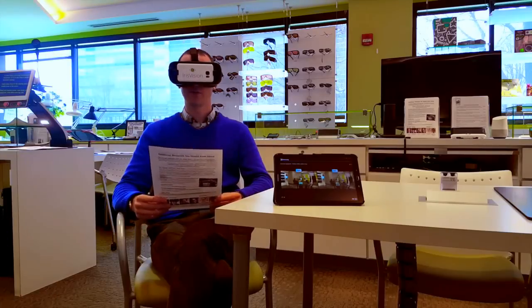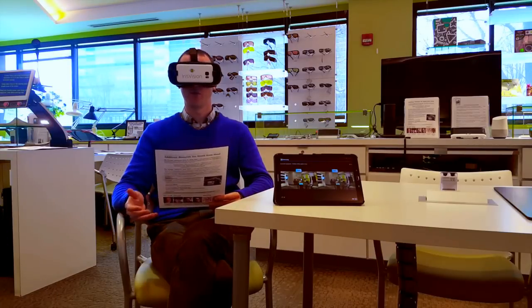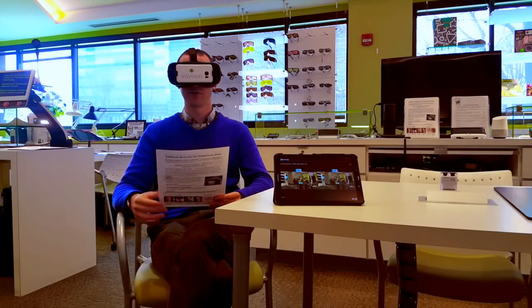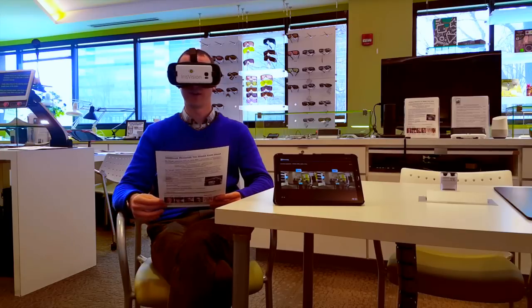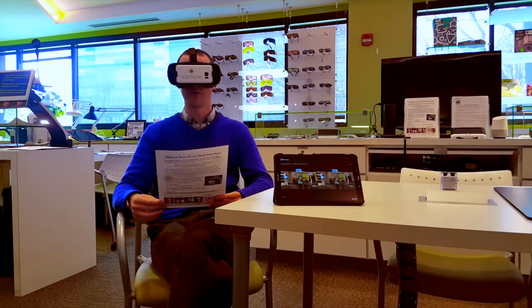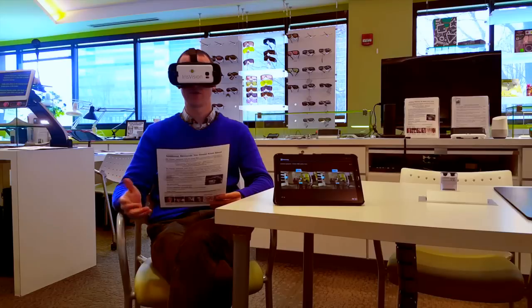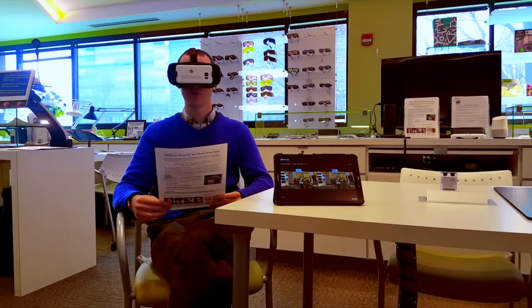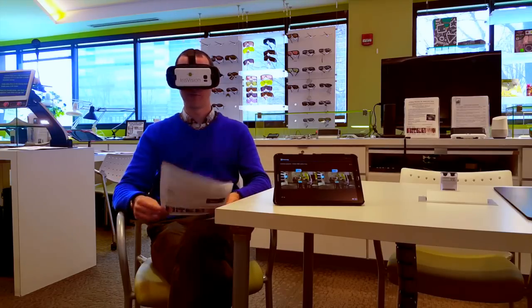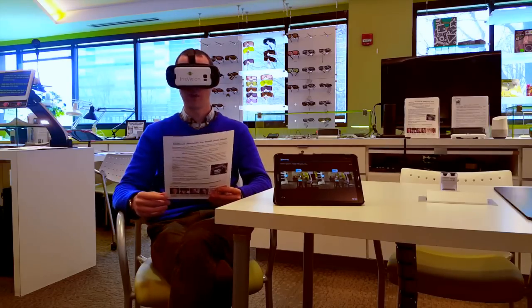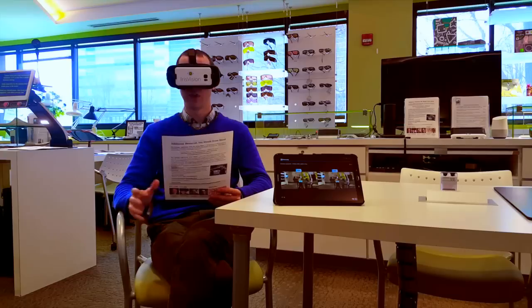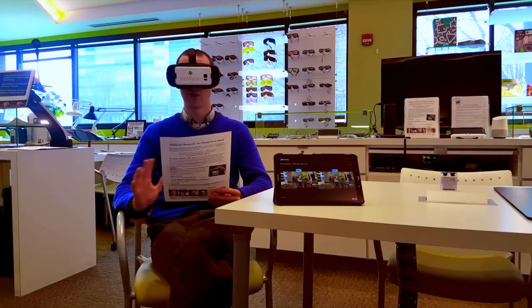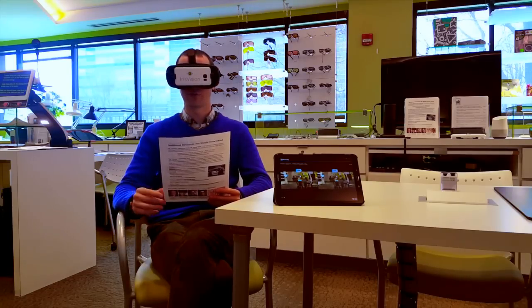So the IrisVision is able to focus at near or at distance. We can zoom into the distance and see things, and we can also focus on things up close. That means we're able to do things like watch television, but we can also read. I've got something to read here. To read we're going to go into the special reading mode. It's going to make the colors inverted and go to full screen magnification.